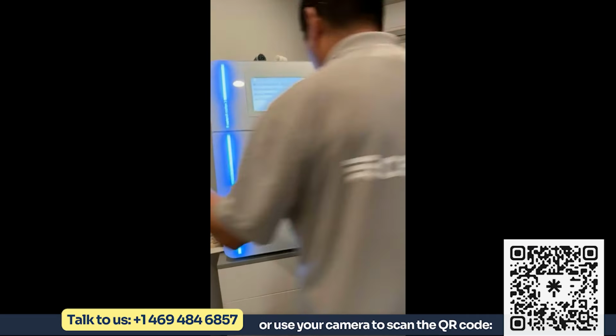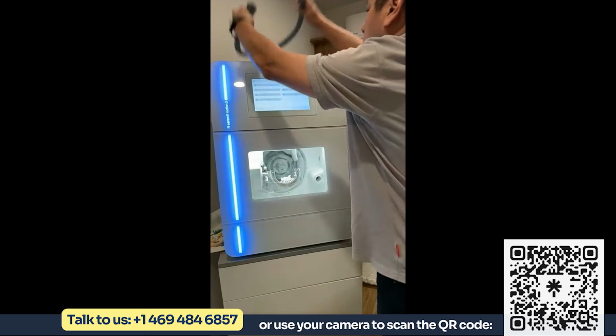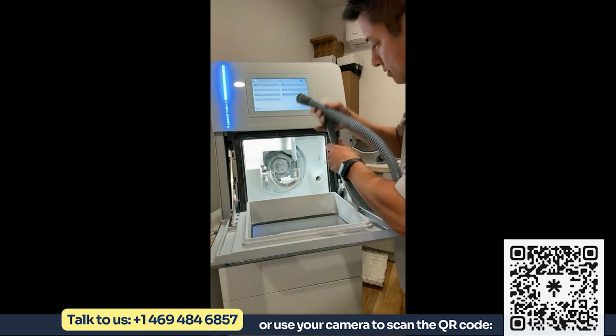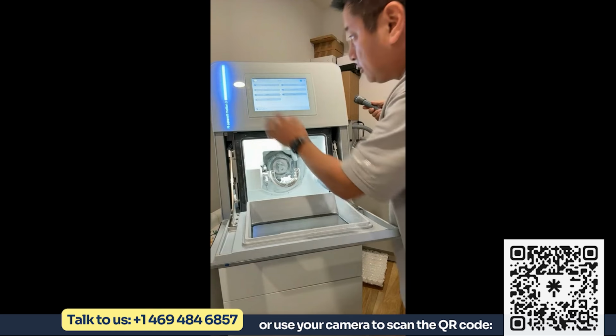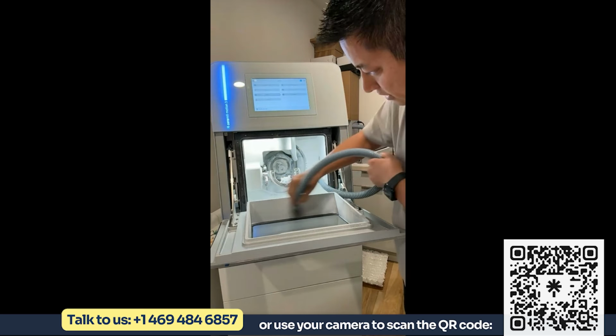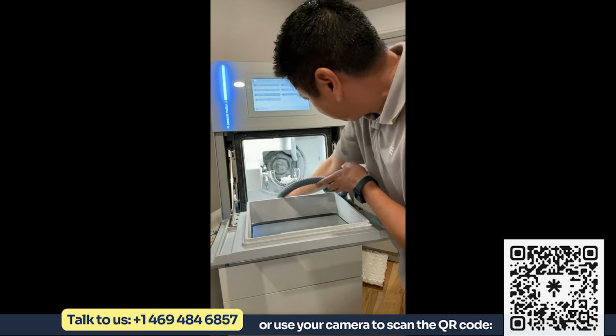Okay. When it comes to cleaning and maintenance of the mill, we have this vacuum hose here. This goes into the side. Turn the suction on. You've got a brush on the tip there. You can now clean your mill, vacuum it out.